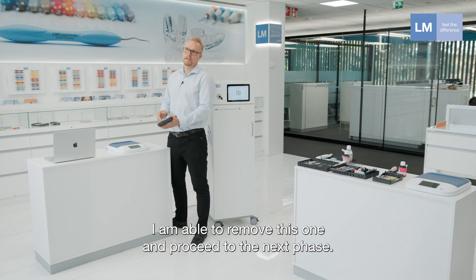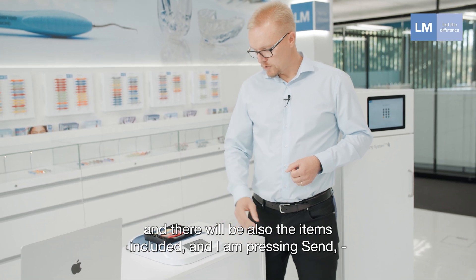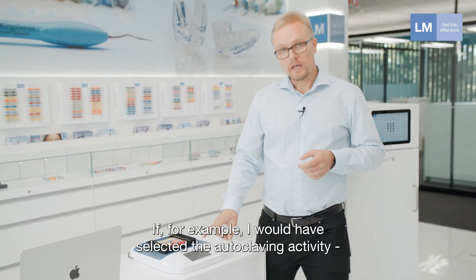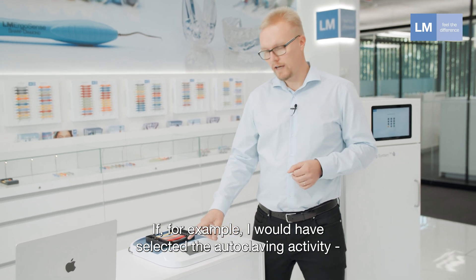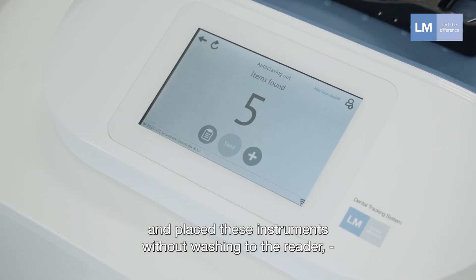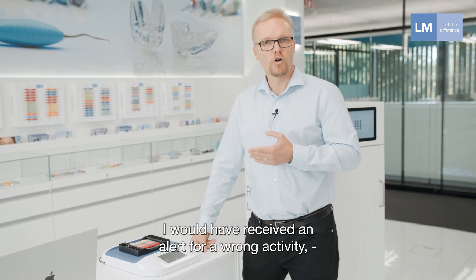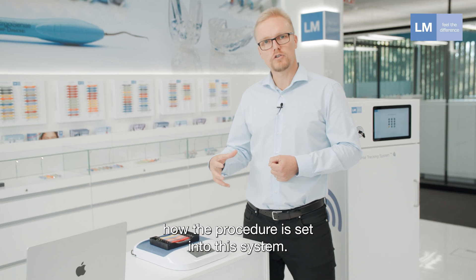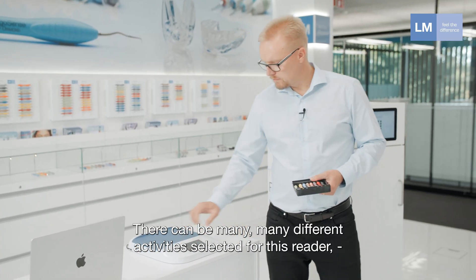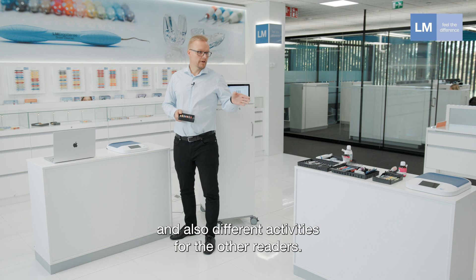I select the return activity on the reader screen, place the instruments on top of the reader, and it tells me eight items are found. I press send and the screen confirms it's accepted. As a next step, I select the washing procedure, place the items, and press send — it confirms I can proceed. If I had selected the autoclaving activity and placed instruments without washing first, I would receive an alert that it's the wrong activity, because it doesn't follow the procedure settled in the system.